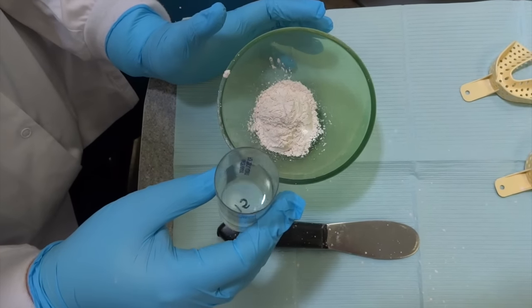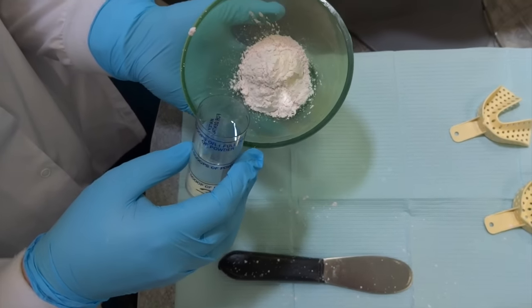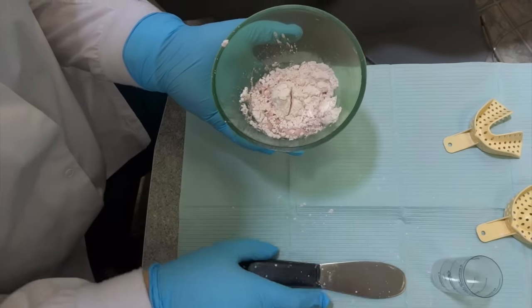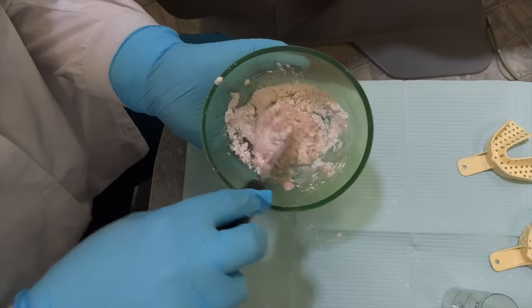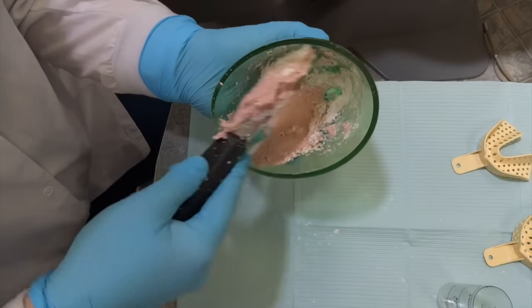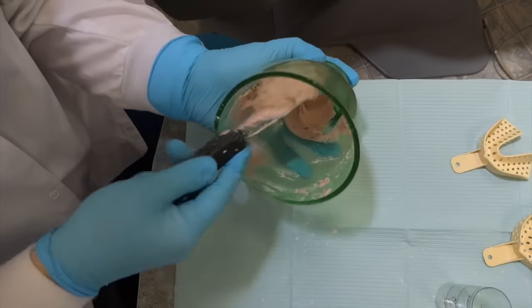The key is timing when mixing. I also use a technique to help get the bubbles out. Add your water, then gently stir in the powder so it doesn't make a huge mess. When it's pretty much covered, use lots of motion against the side of the bowl to make sure all the powder is mixed in and all the clumps are out.